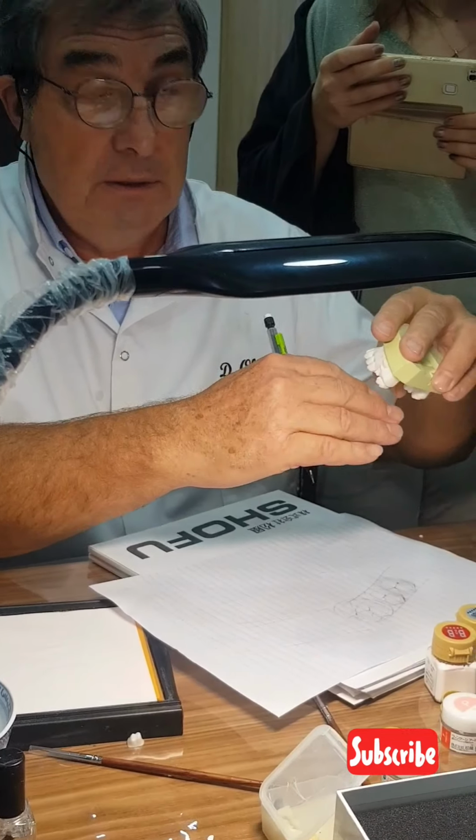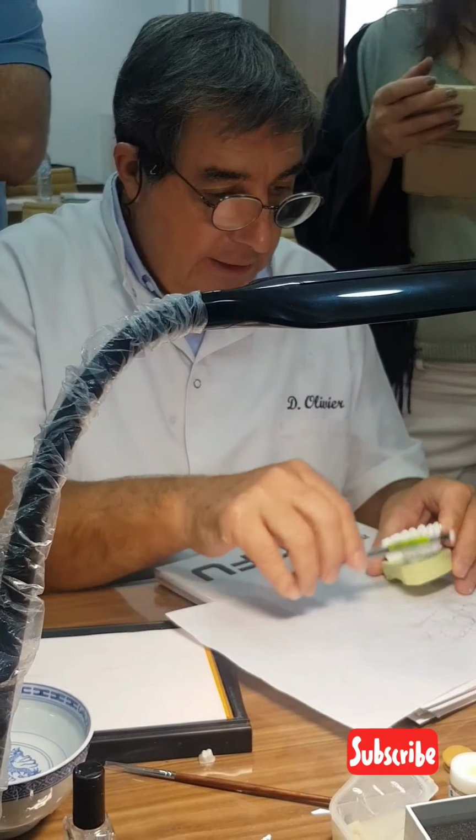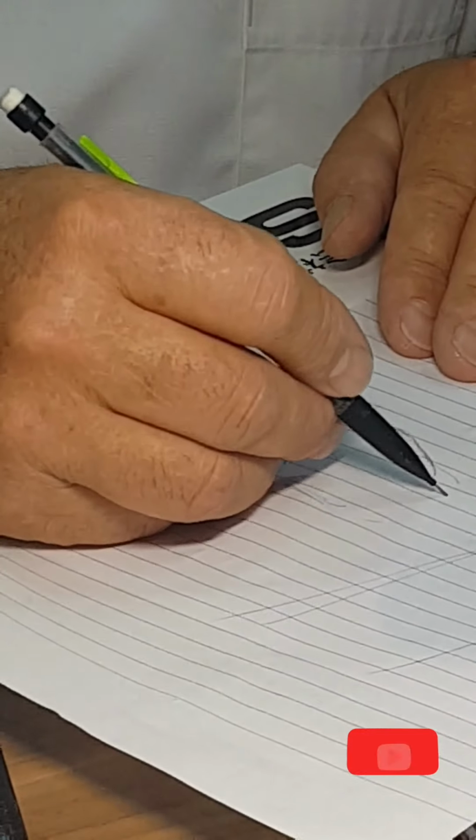down longer. So I have already, when I start, it's why I always take 1 second, 2 seconds, 10 seconds to understand. Oh, now here, what I have to do now. Okay? And look, another piece of information: if it's too long, that means that I have to do the root, the beginning of the root. So the story will be something like that. Very beautiful, I'm sorry. The beginning of the root here.